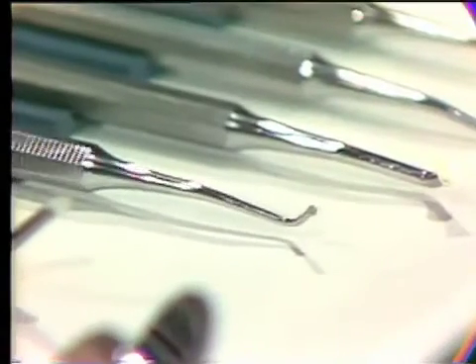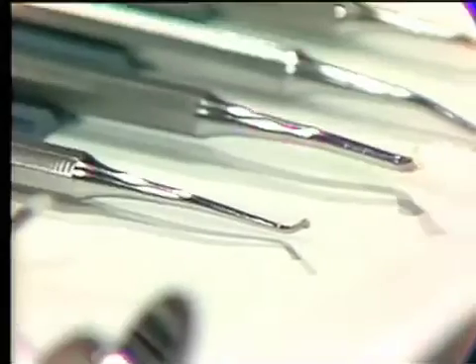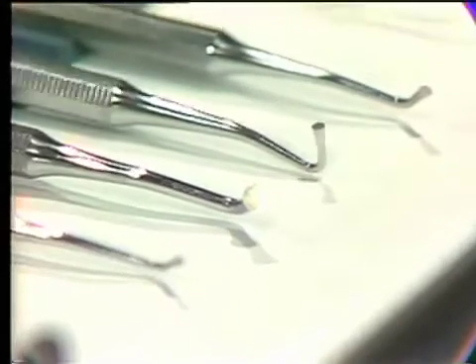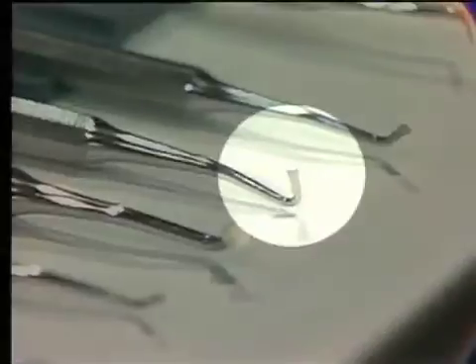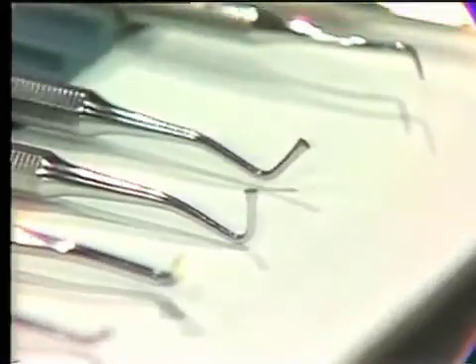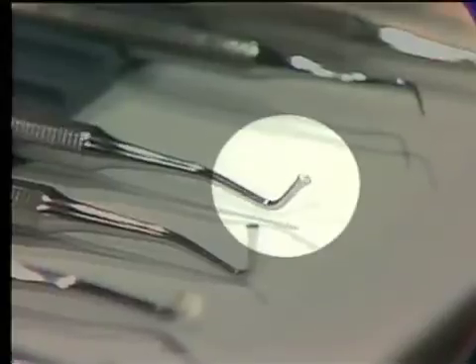Looking at our pluggers, we've got four different types set up in the order the dental assistants are used to them, labeled one through four. You may prefer to call them by name: a small round, which is the main instrument used; then a larger round, which is number two for the dental assistants; then a right-angle one used in more difficult access areas, which is number three; and an ovoid one, more commonly used in interproximal areas — we'll use this in the class two, but not today.